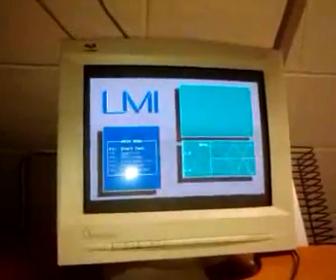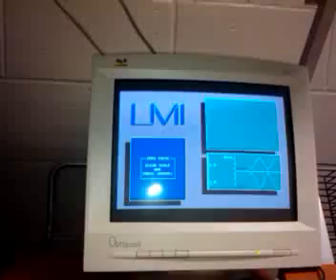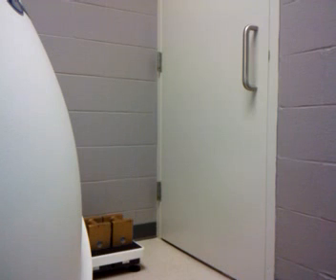After 30 minutes, press any key. Go to utilities, then F1 or enter on calibrate scale. You want to check and make sure that the scale is clear. Press enter again. Then we're going to put our weights on the scale. Press enter.